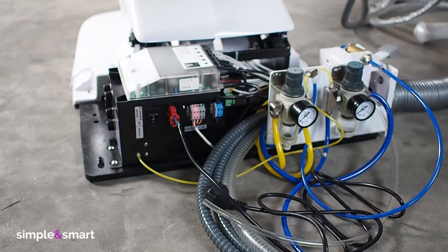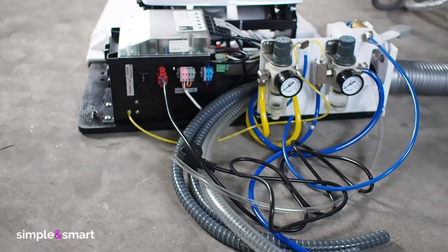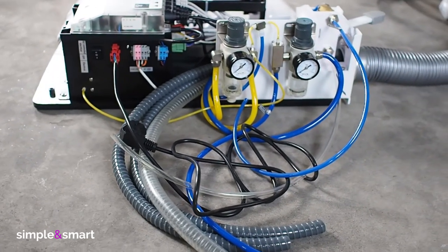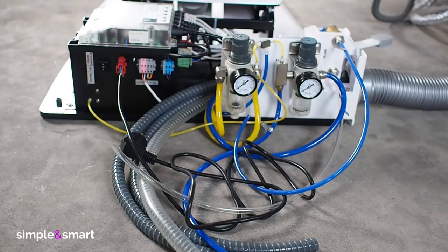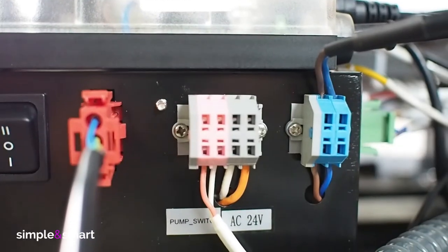Follow the instructions in our videos to make a correct connection with wires and pipes coming from the floor. Connect the suction motor, if you have any, on the pink connector.